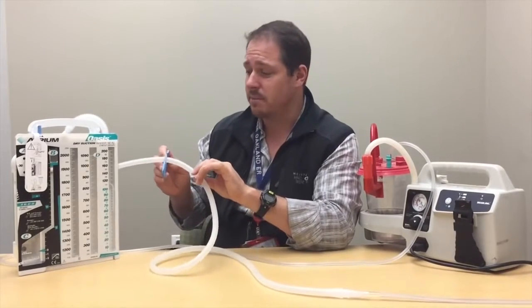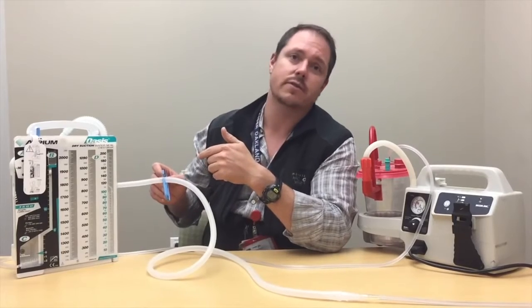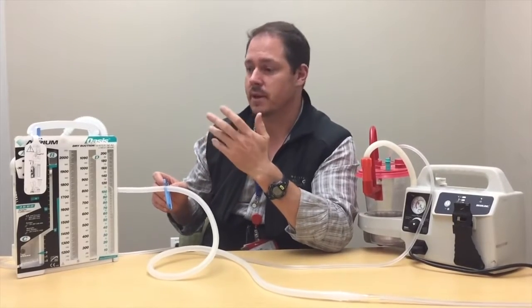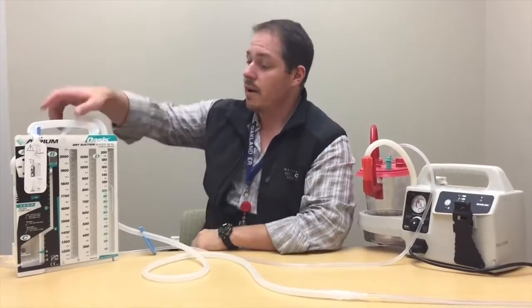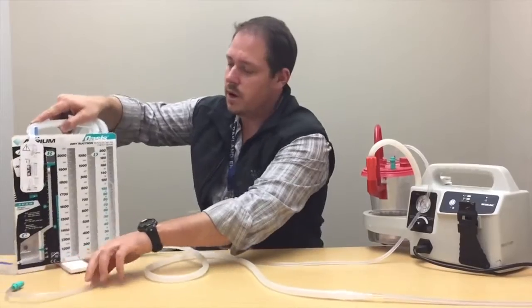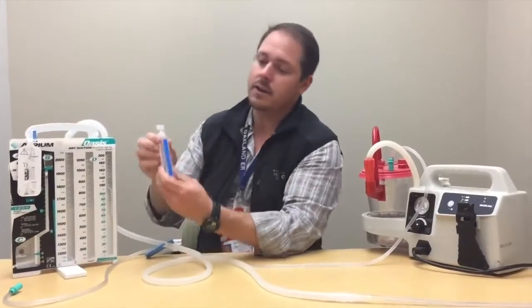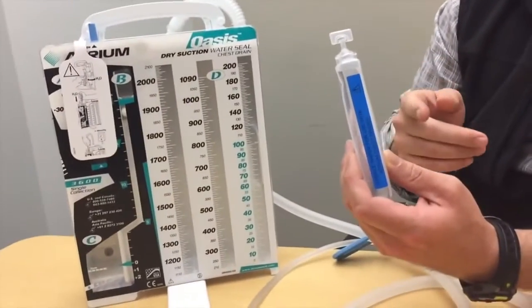There's an integrated clamp — don't lose these. They're always important so you can test for leaks in the system if needed and quickly clamp in an emergency. There are also feet that you can rotate out to give a better base of support. In the back, you have 20 mls of fluid needed to create your 2 cm water seal.